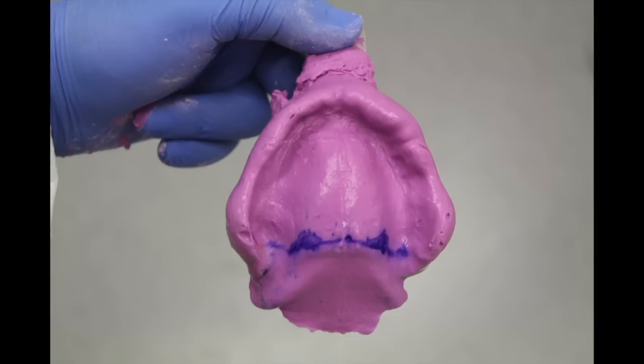Here's the final impression. You can see there is a PPS — don't be distracted by that. What I want to show you is a good peripheral seal all the way around. We've got a good solid impression; there is a little bit of a notch on the back. Keep in mind this is for a custom tray — the custom tray is going to be cut back by about four to five millimeters. That bubble on the left is not going to affect that because it's going to be cut away. You can see a good solid seal everywhere. The PPS was designed there — we're going to do it again in the second impression, but designed here to tell the laboratory how far to bring back the impression. That's everything on the technique and the materials used.